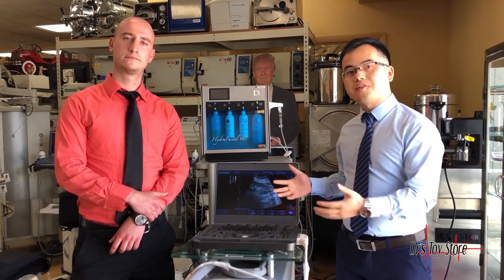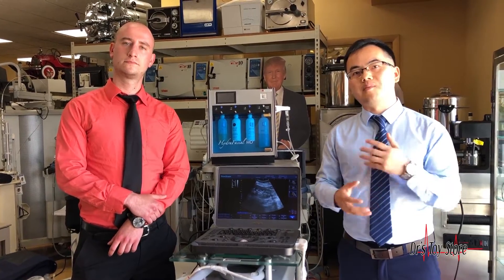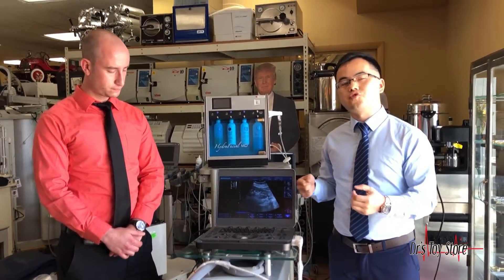I'm Gavin, responsible for the southeast US market, and I'm the deputy regional manager for this market. Today I have brought our X5, which is a mid-range portable ultrasound that can be used in emerging applications such as ICU, point-of-care medicine, anesthesia, and vascular. This product is a hot-selling portable ultrasound and it is very easy for traveling, so we have very good sales in the US market. Sonoscape is now investing more people and resources into developing this market.